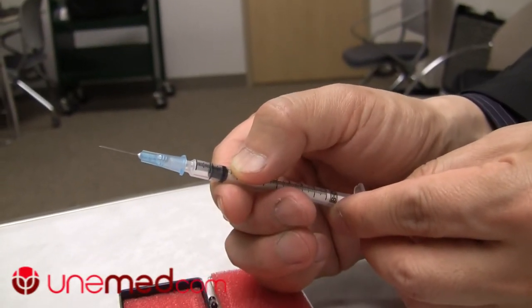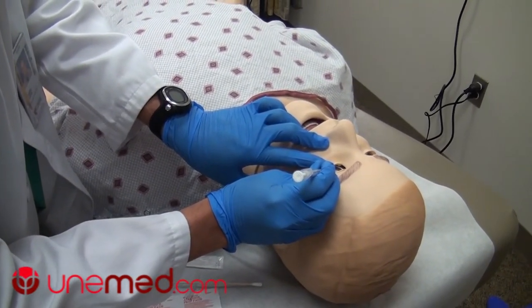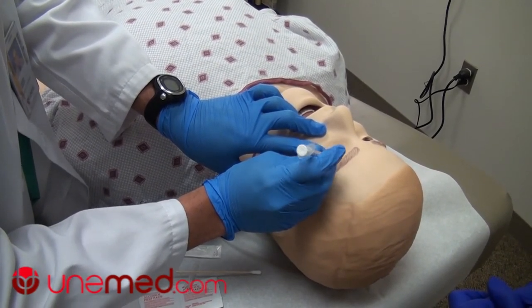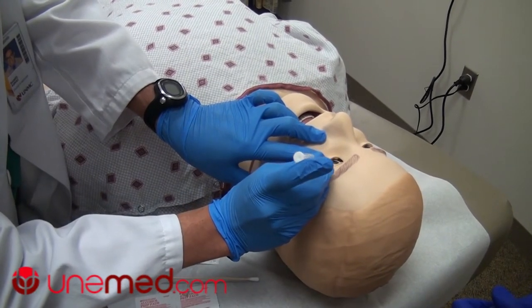I would have to hold on to the patient's eye with one hand and then with the other, I would have to inject the needle into the eye of a child, and then I would have to extend my finger and try to inject. This is technically extremely difficult.